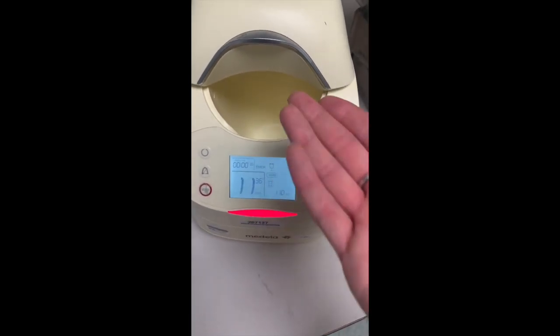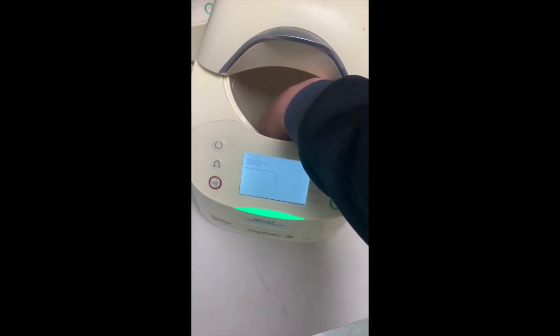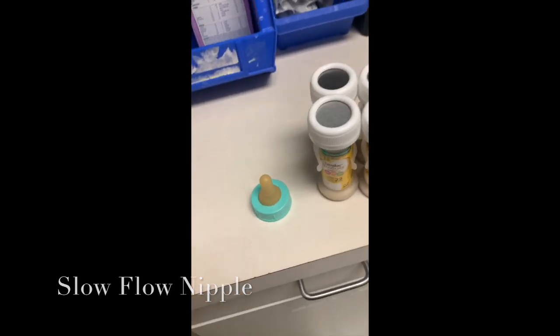Right now, it senses that there is no breast milk in there, so it's giving me an error. Maybe if I place my hand in here, there we go. Then it turns green and I can click start and it'll warm for you. Quick and easy.